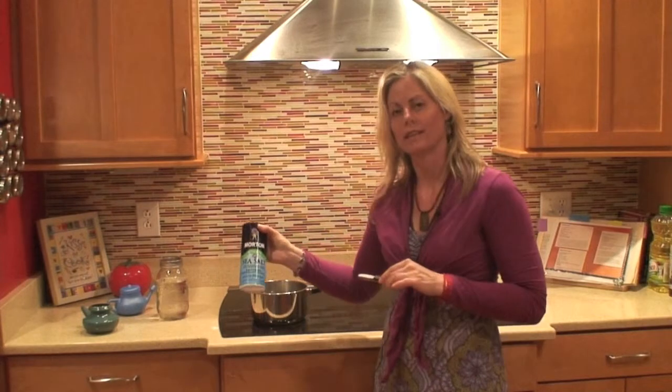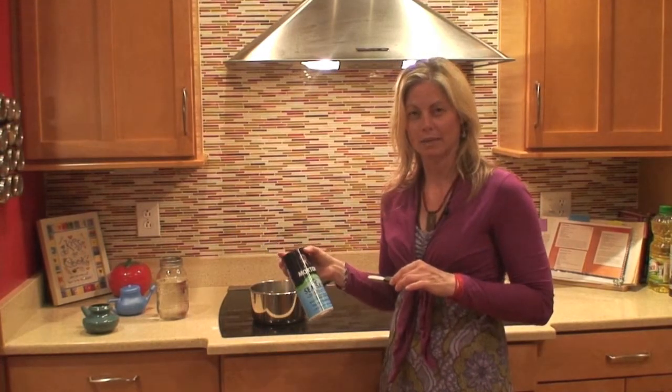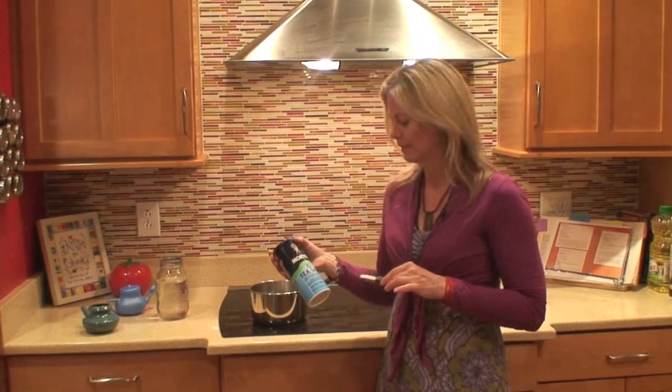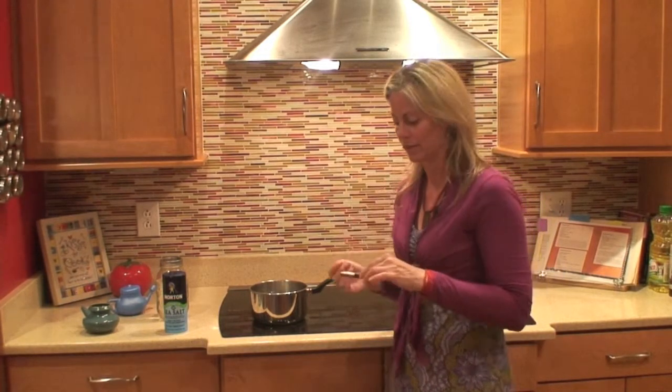The reason for sea salt is that rock salt may have minerals in it that may not dissolve completely in the water. It's okay to use that, but then there can be a little grit left behind. And also the regular table salt has iodine added to it, and iodine, while it's a good mineral additive for our systems, if we put it into the sinuses, it'll burn. So we want to use the sea salt so it's more comfortable.